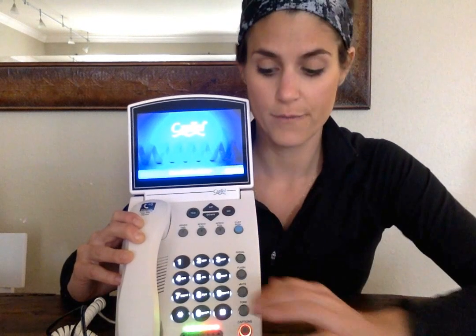And as you press it, decide, where do you like the voice to be? Do you want it to be lower, medium, where their voice is normally, or higher, a little higher pitched? So once you find what you like, you find your favorite, you click on it and you leave it. It'll save that information, you just leave it. You don't have to do this every single time you pick up the phone. You'll usually like the same range for every call.